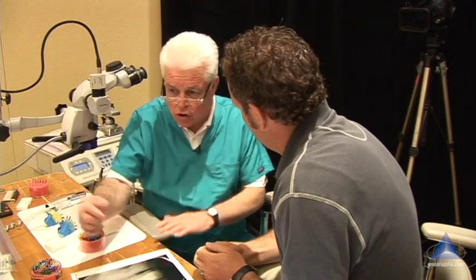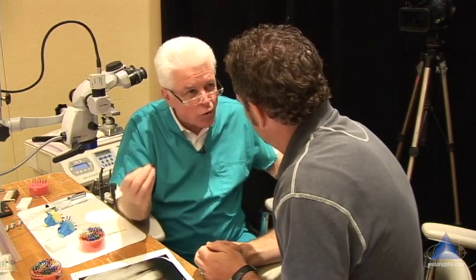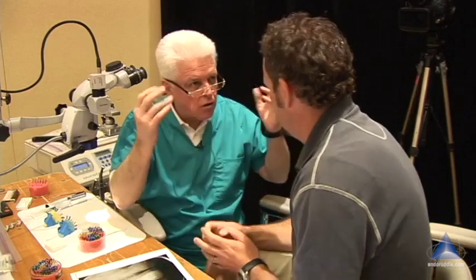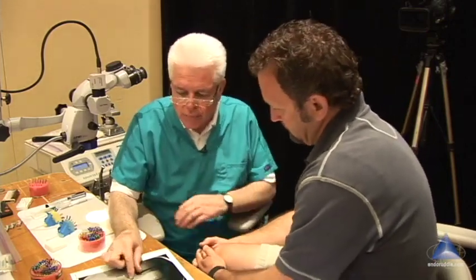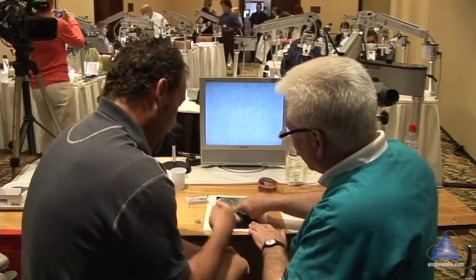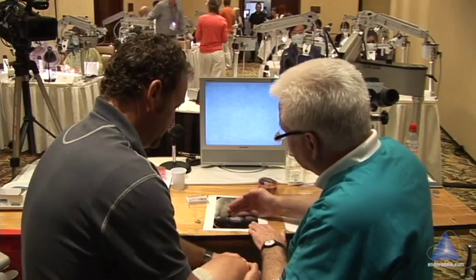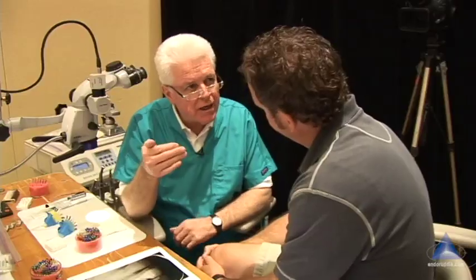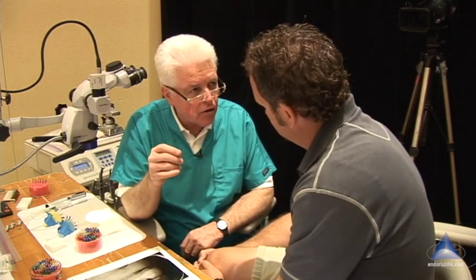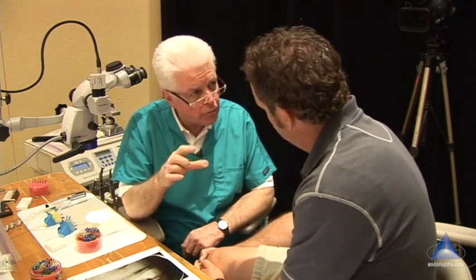This is what it was like using a Bunsen burner until the instrument was cherry red hot — obviously it cools coming through the air, but you go into the tooth. So if you're doing interrupted — where you plunge, take out a bite, pack, go in, plunge, take out a bite — and by taking out a bite we get deeper and deeper — that's what I call interrupted versus continuous wave. You should set your elements to 350 degrees, but you're doing much briefer contacts.